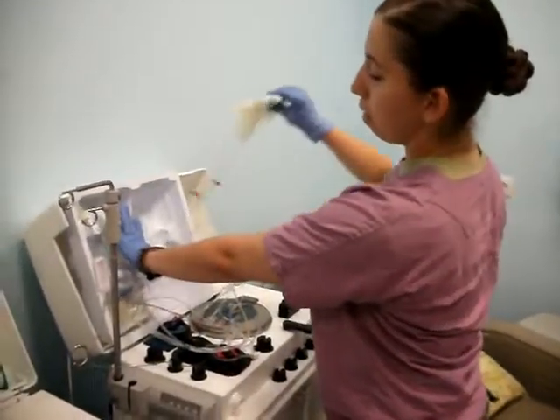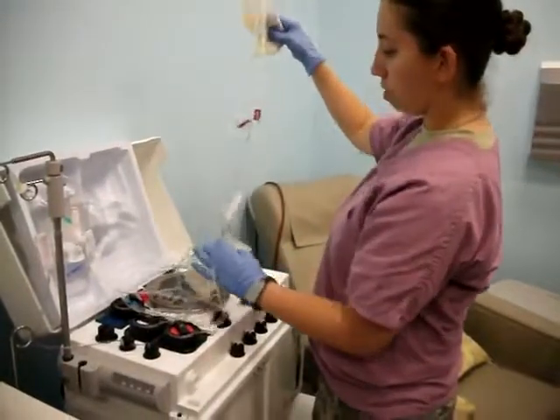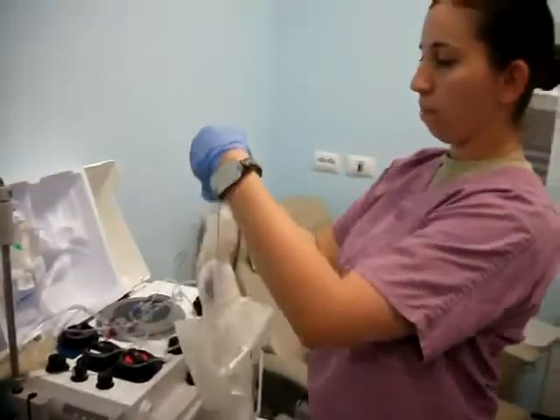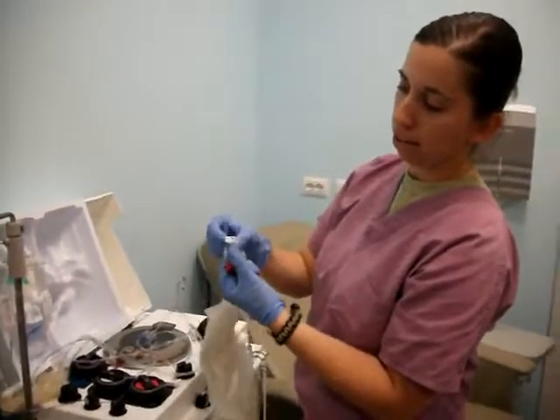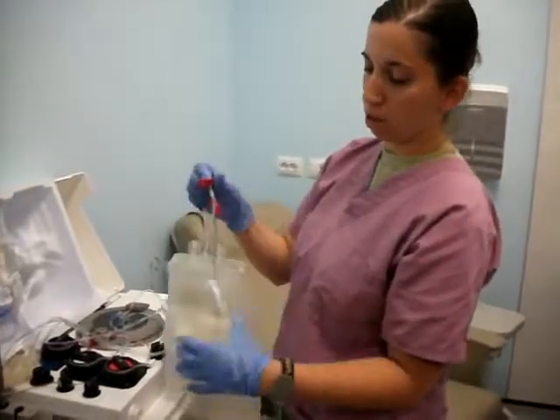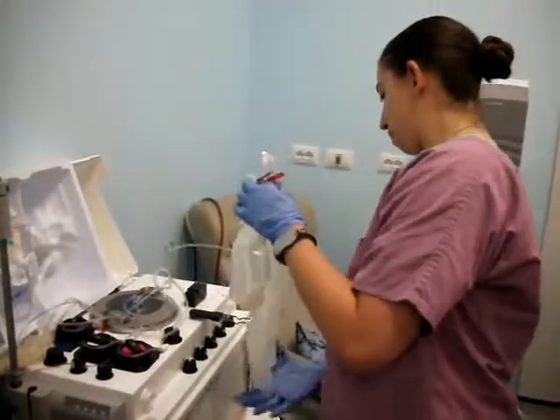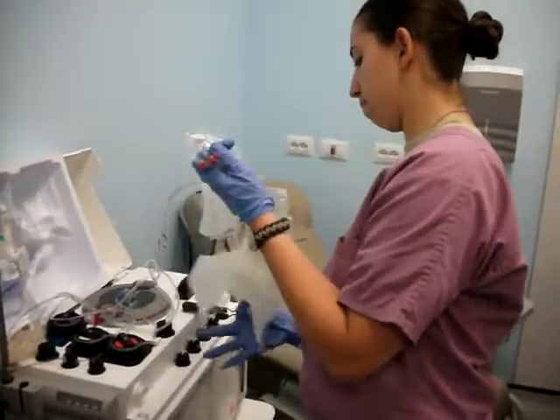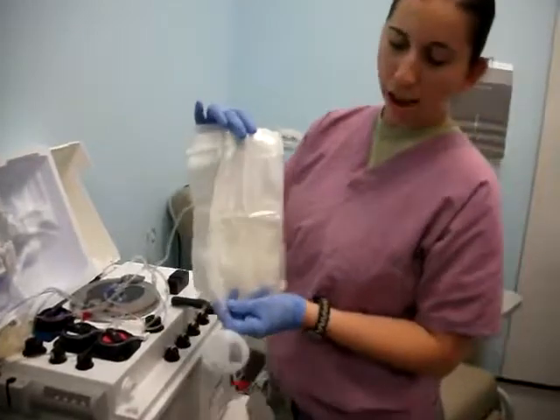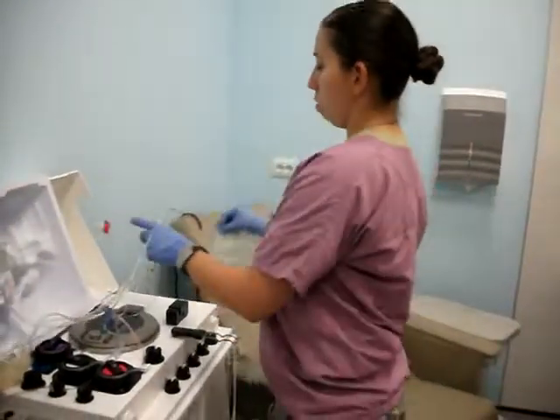Next, you're going to pull out the platelet bag from the filter bag, then pull it apart. Go ahead and snap your culture bag closed and clamp one of these red clamps closed. Now you'll want this filtration bag facing on the outside of your machine right here.